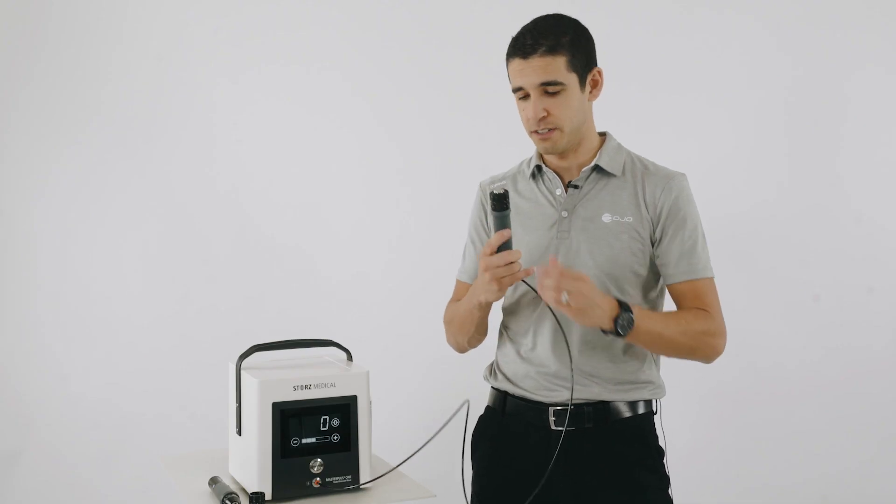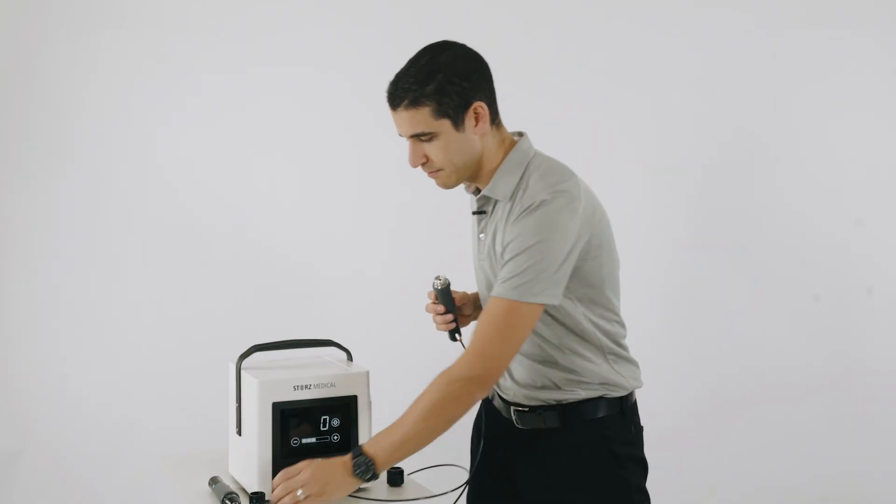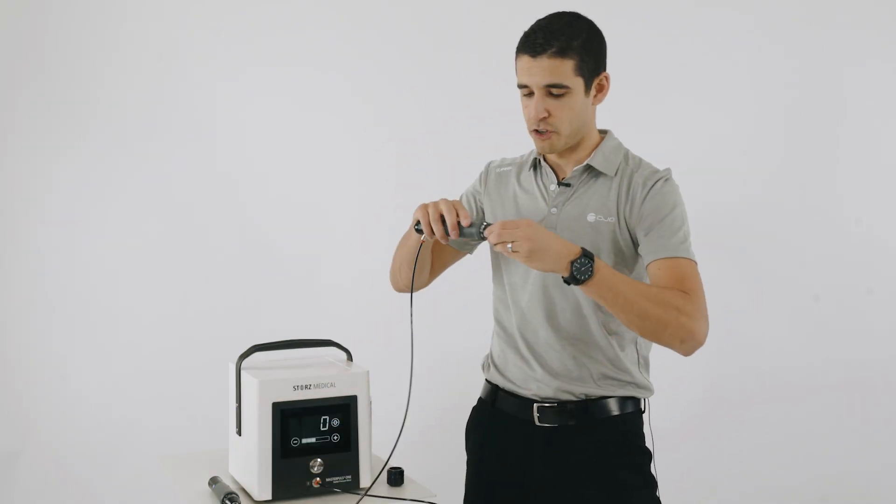To change between transmitters, simply unscrew the transmitter from the Sparrow handpiece and replace with another transmitter.